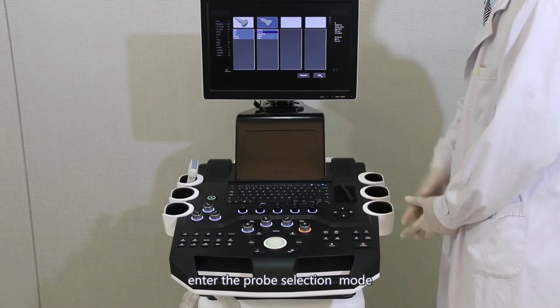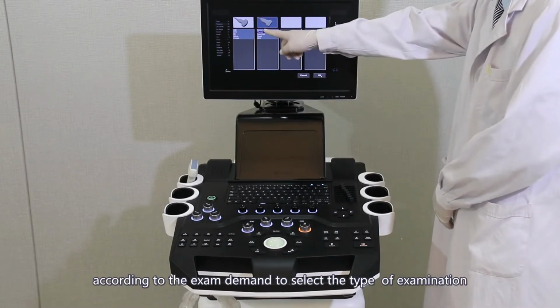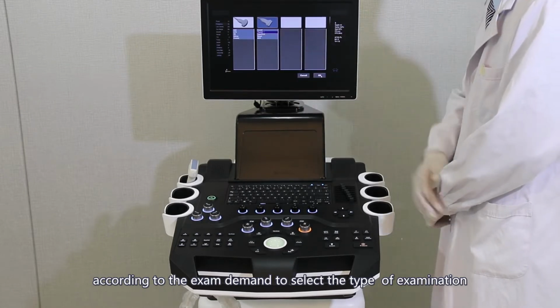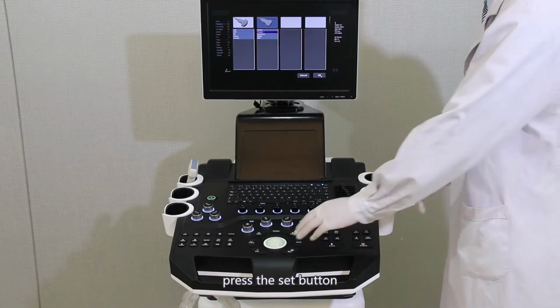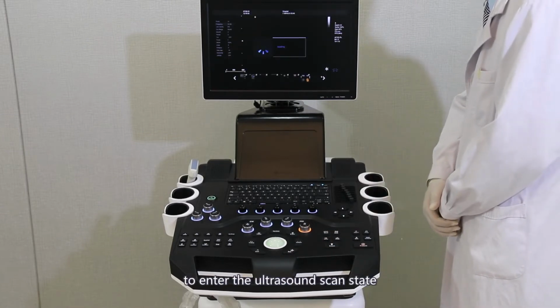Enter the probe selection mode. According to the exam demands, select the examination tab, then press the Set button to enter the ultrasound scan state.